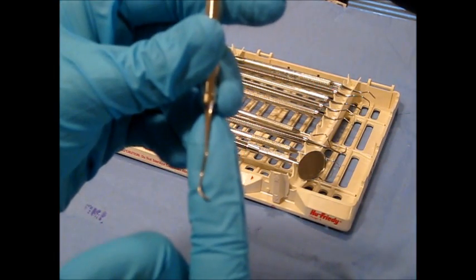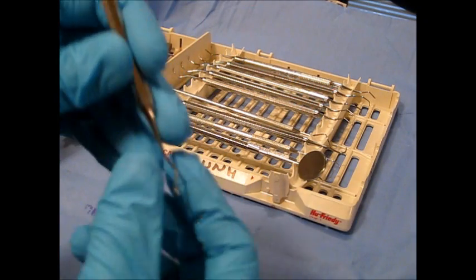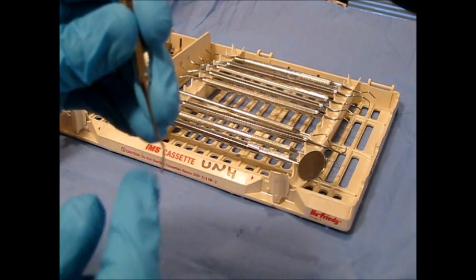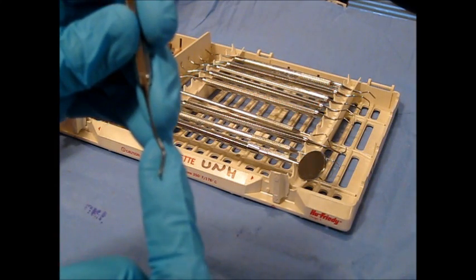This instrument is only used supra-gingivally. It has two usable cutting edges per working end.